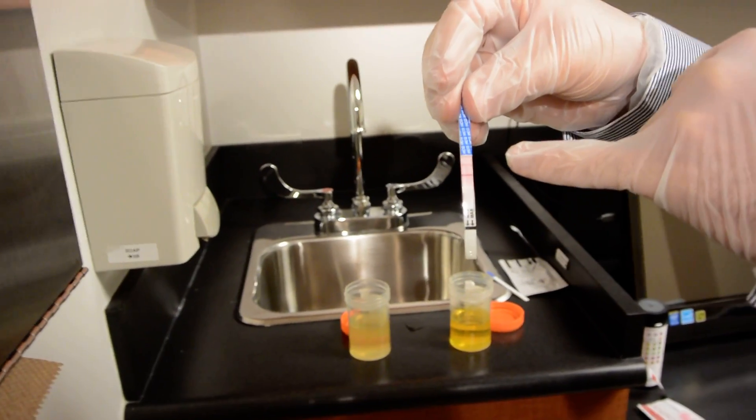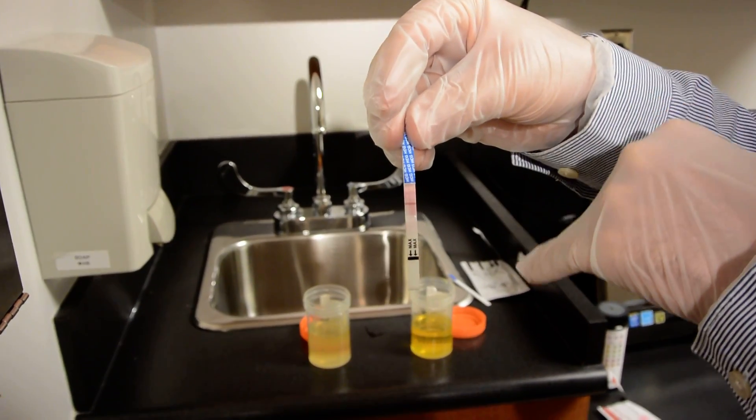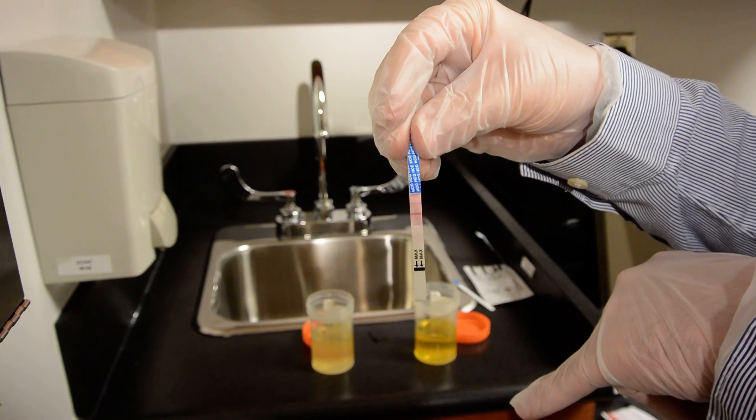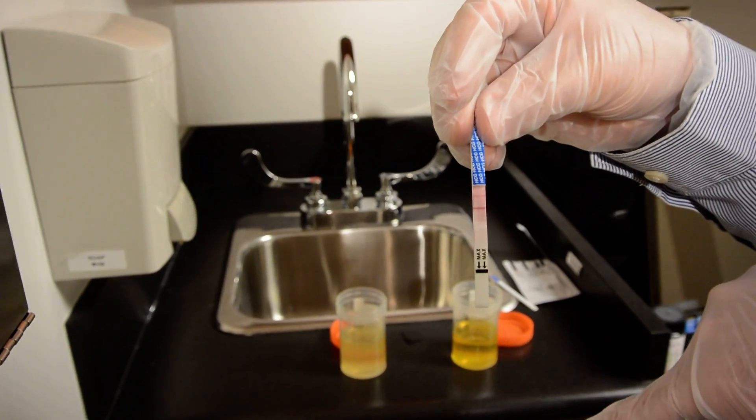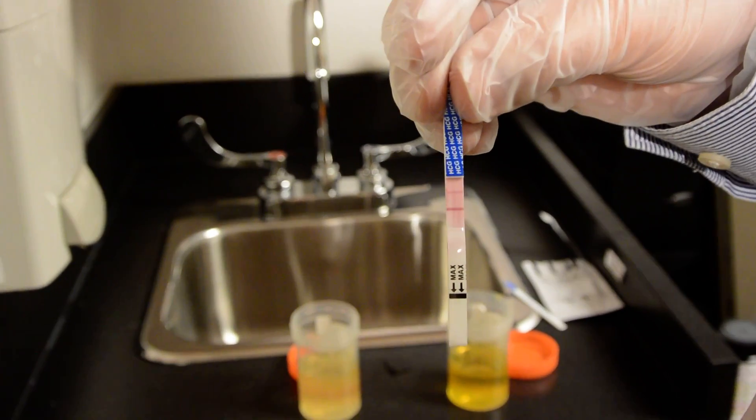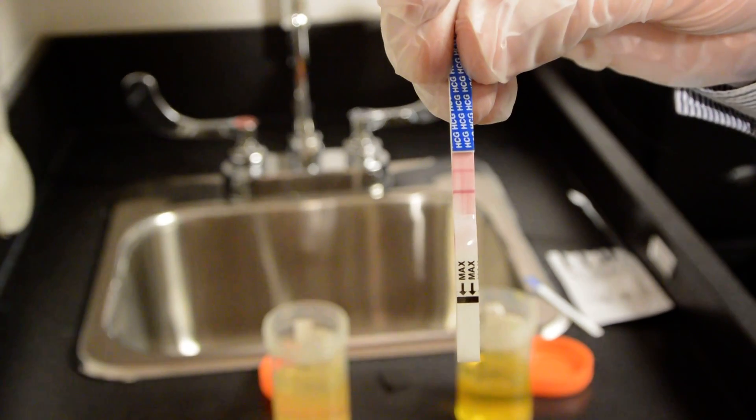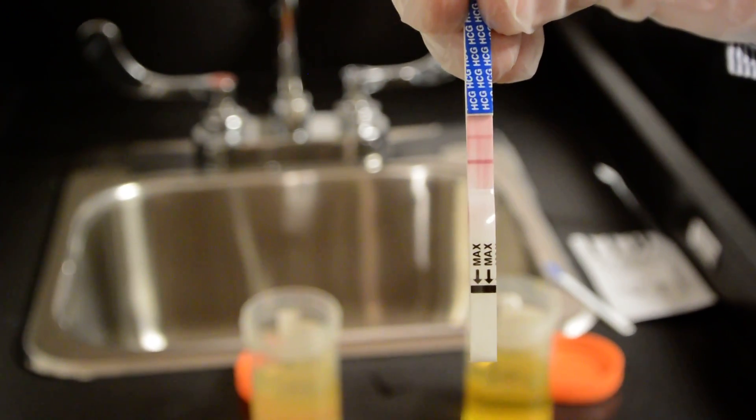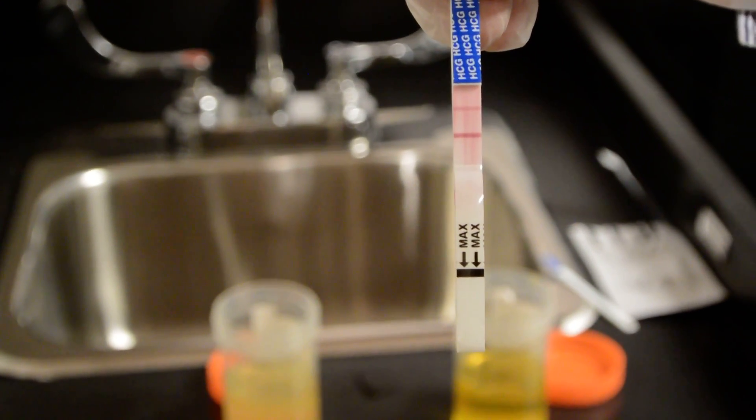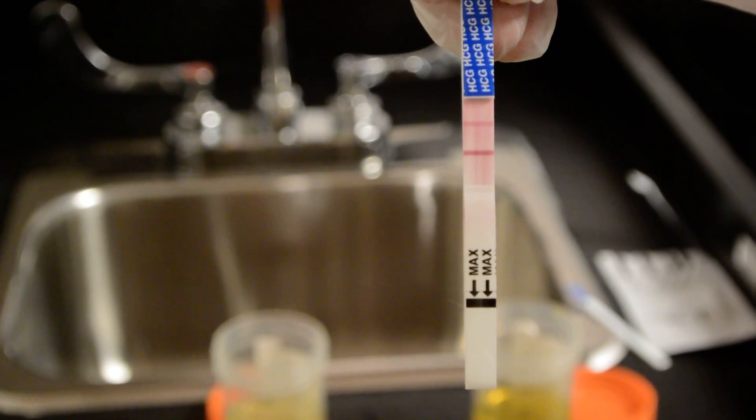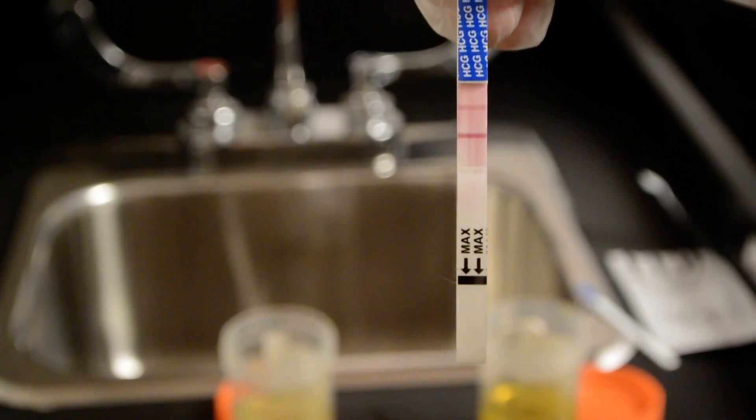You have to be careful because at time the second line is very faint and initially you might look at it, it might look negative, but if you wait longer the second line will show up. The second line is faint when the pregnancy is very early.